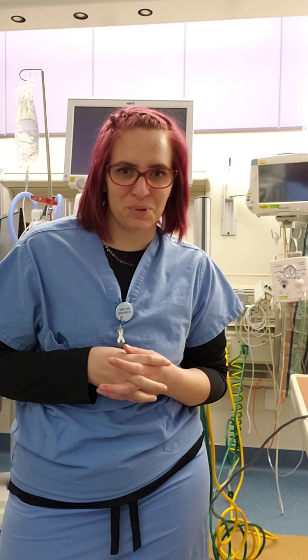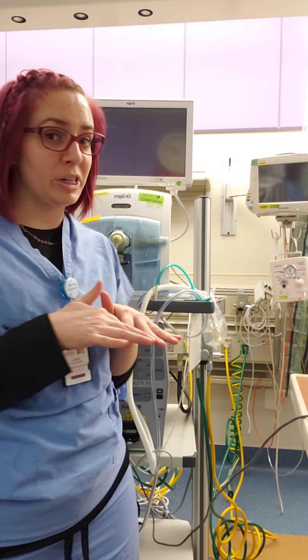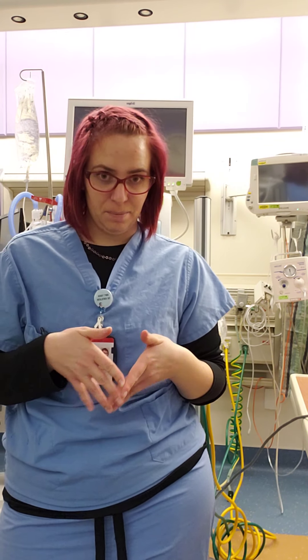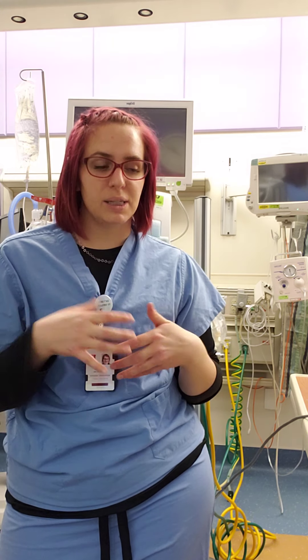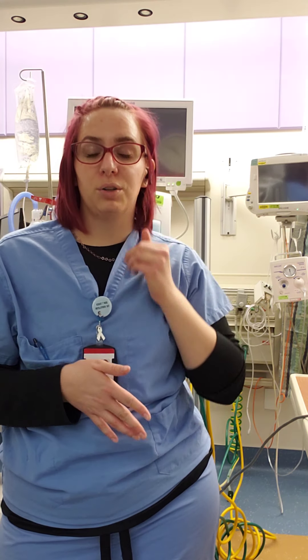Hey guys, welcome to Respiratory 3260 lab videos. At this time I'm going to set up the Bunnell jet ventilator, show you the bits and pieces. I am making a separate video for theory, so I'm not going to go majorly into theory on this video, but I will go into the mechanics and the nuts and bolts of the ventilator.